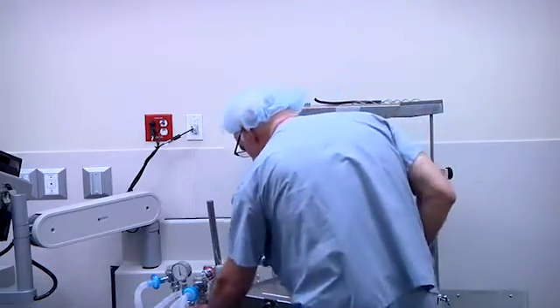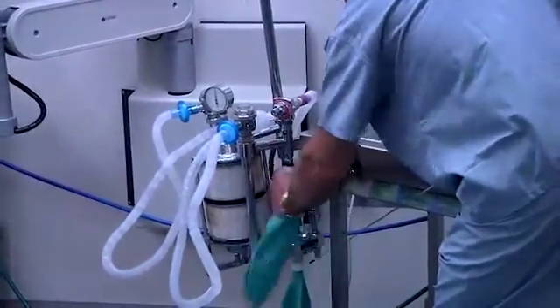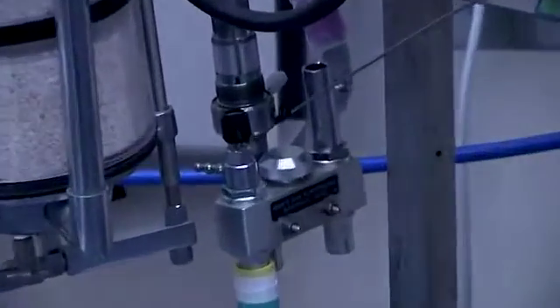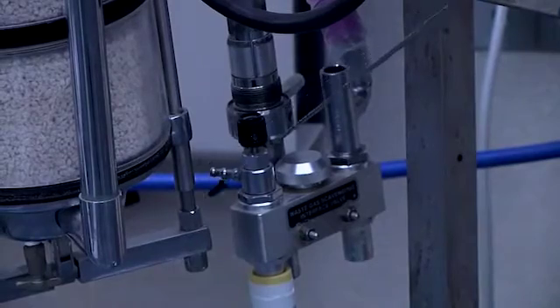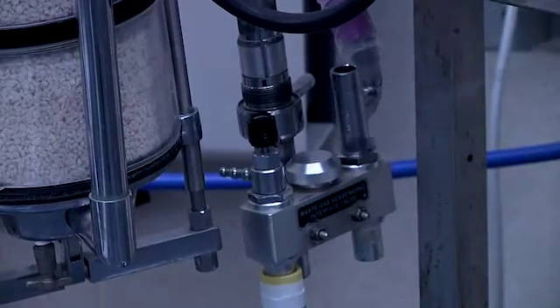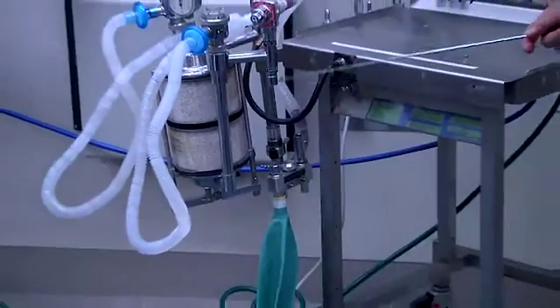The scavenging block, as seen here, was still in use until a few years ago. The ventilator would connect here, and the suction from the wall would connect here, controlled by the needle valve. The same was true of many machines in the years that followed.